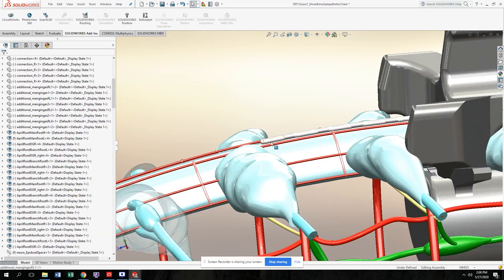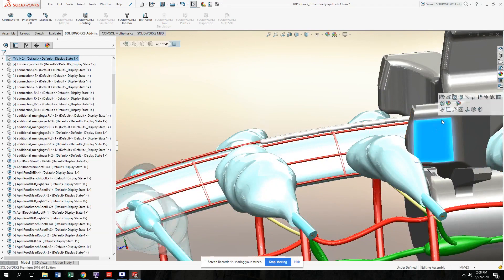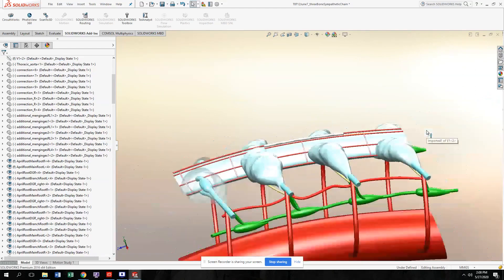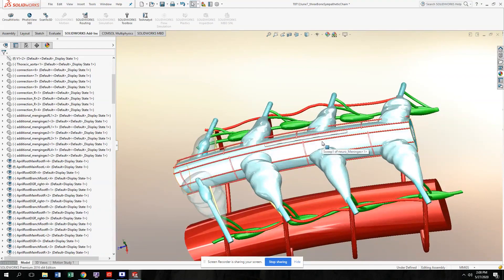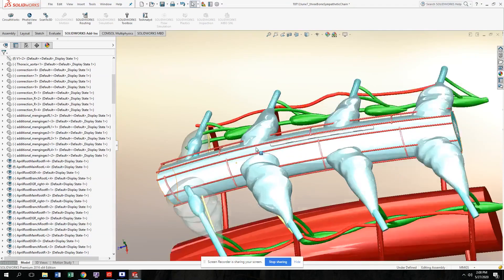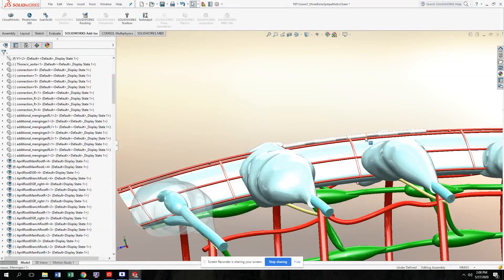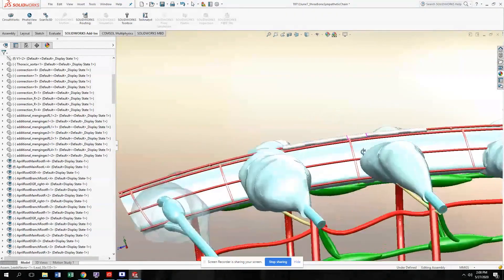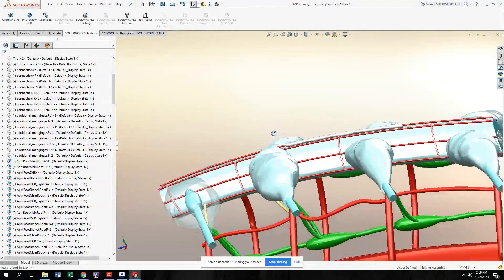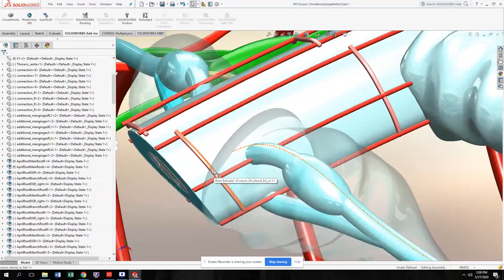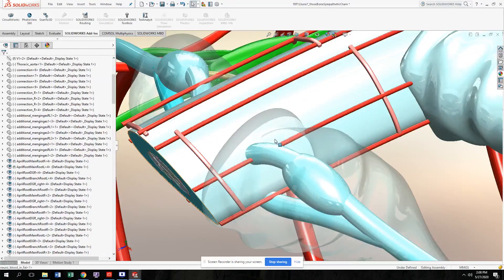You can also see the electrodes that we place here. These are electrodes placed here for spinal cord stimulation — you can place them at the location of your choice. Currently they're placed inside the epidural space. You can also see several blood vessels that run in transverse directions connecting the blood supplies of two parallel running blood vessels.